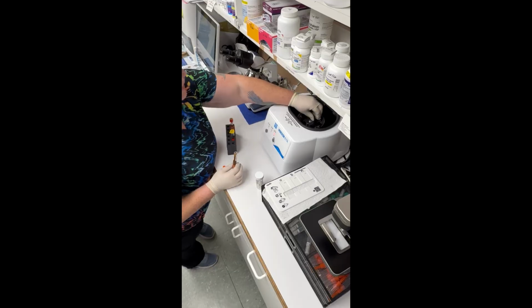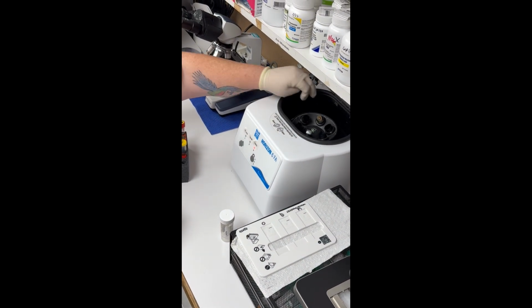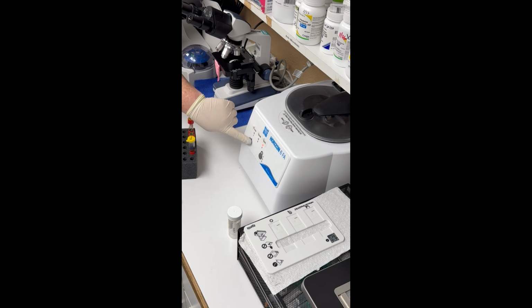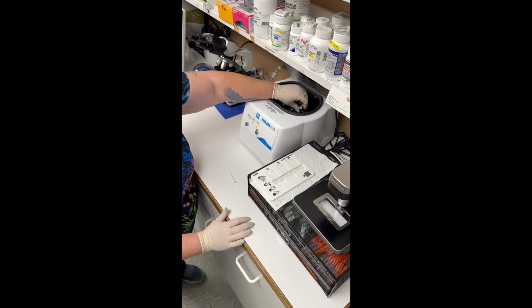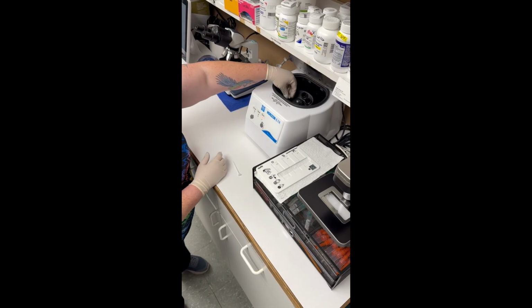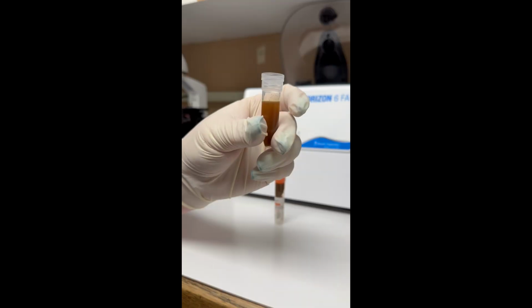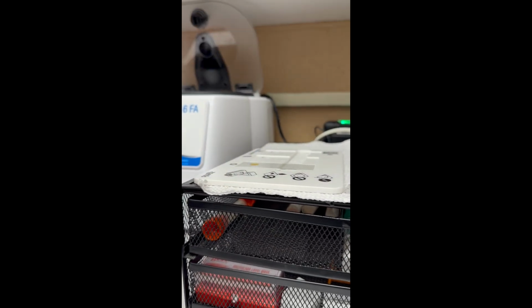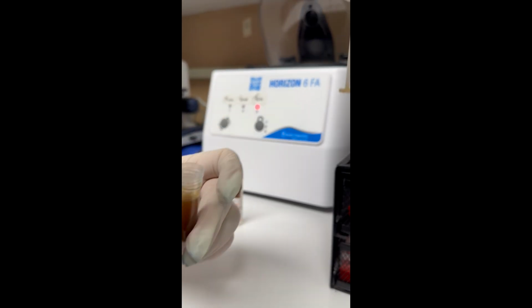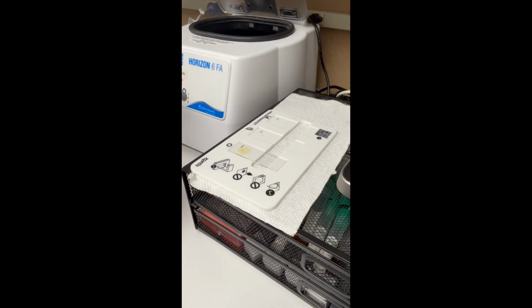You do have to shake it, and you do have to mix it quite well in order for this to run correctly. Next, you're gonna load it up into the centrifuge, make sure that it is balanced, and make sure that it is on the fecal. Next, you're gonna grab a float stick from that drawer, and once it's done spinning, go ahead and grab your sample. You're gonna take that stick, dip it right below the surface line, dab once, do it one more time. Use the edge to make a circle on the surface of the slide.